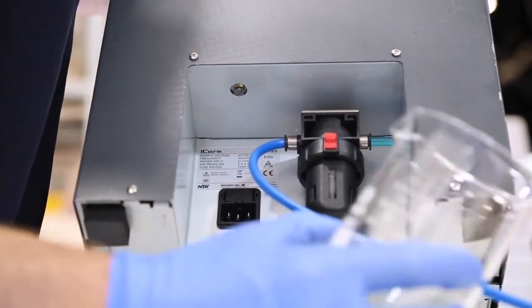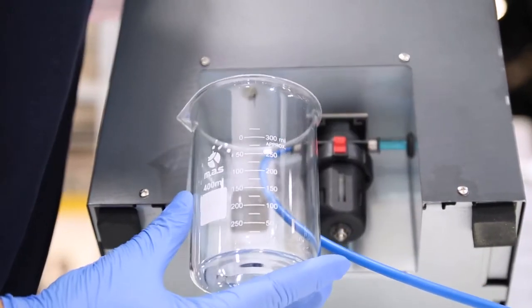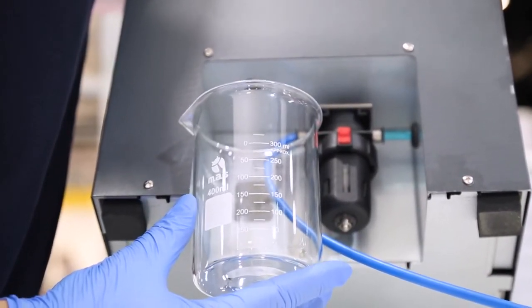It is important that the air filter is free from moisture, so regularly check the filter just to be safe as weekly maintenance.